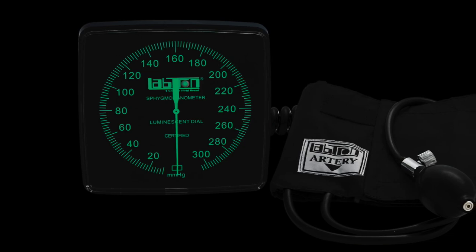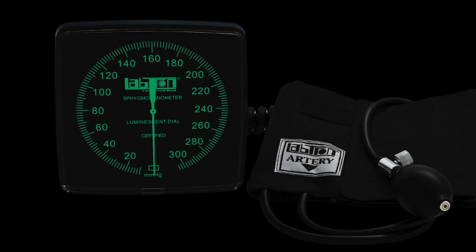Featuring a luminescent dial, this sphygmomanometer is easily read in low light.